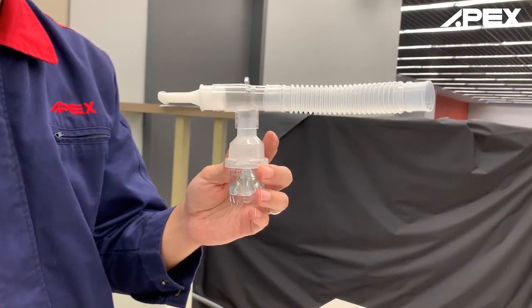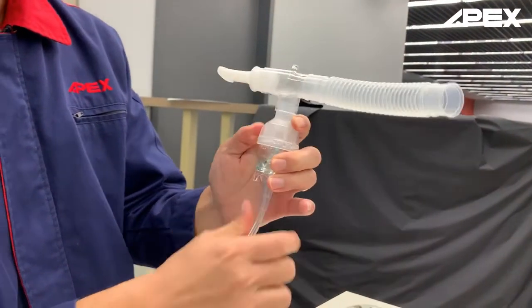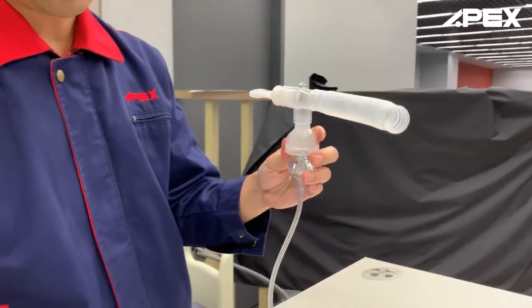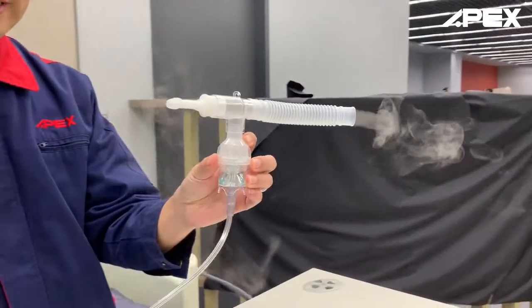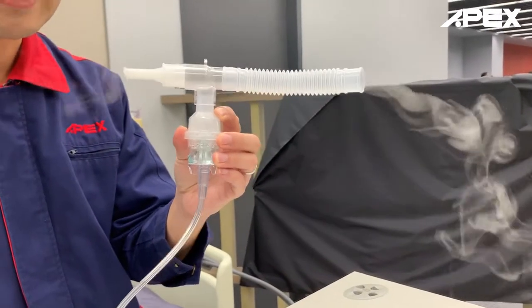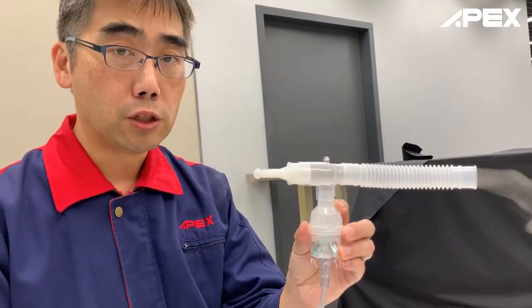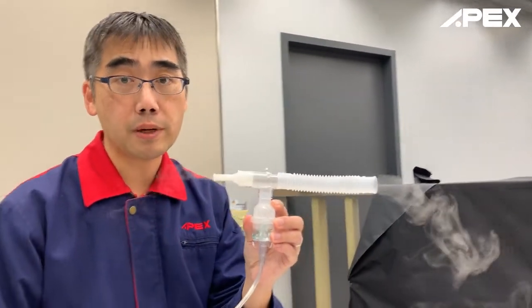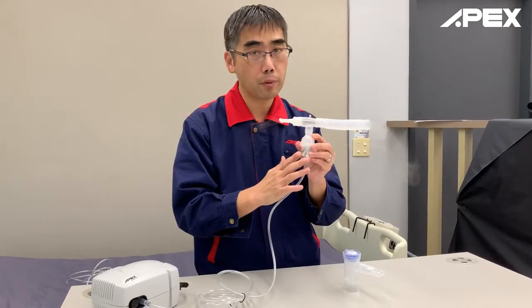Let me insert this oxygen tubing. When I switch on, the aerosol will start to give output, and no matter if the patient is breathing or exhaling, it will just keep coming out. So at least 50% of the medication will be wasted and may pollute the nearby environment. This continuous type is very popular.